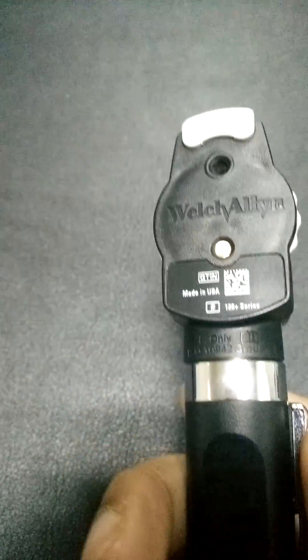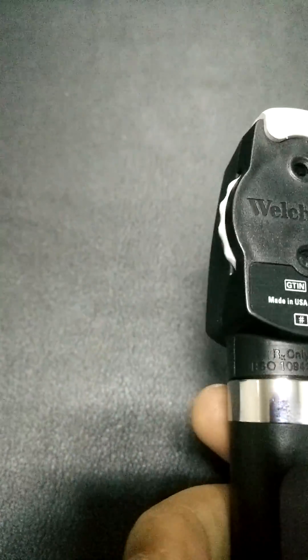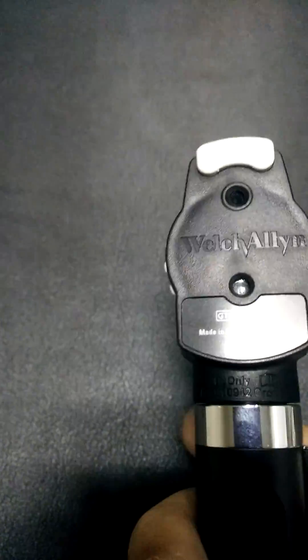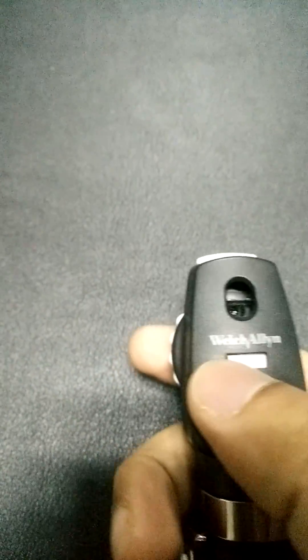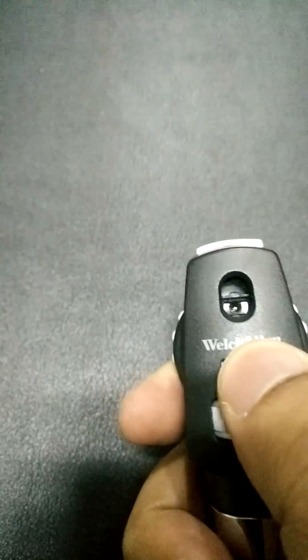If you look at the website, there are two versions of this ophthalmoscope — one is called the Pocket Plus LED and the other is called the Pocket LED ophthalmoscope. The basic difference I have noticed is that the Pocket Plus LED has a neutral filter, which apparently reduces the corneal glare. I don't know if you will be able to see the difference in video, but we are going to give it a try anyway.